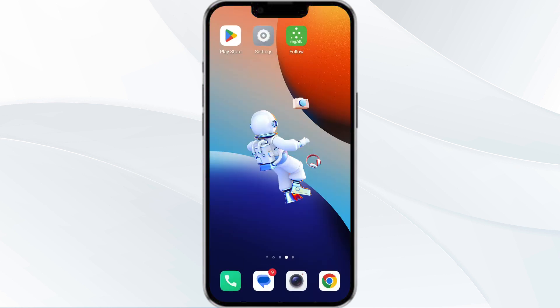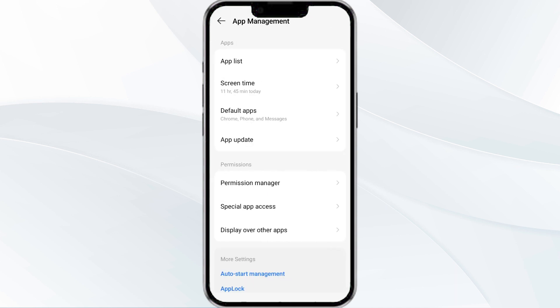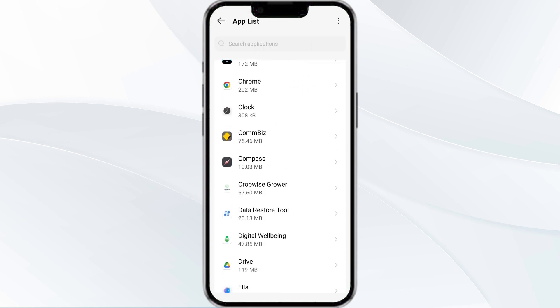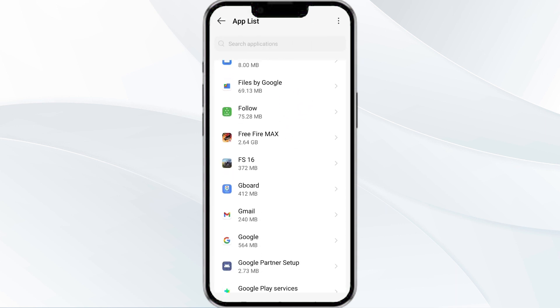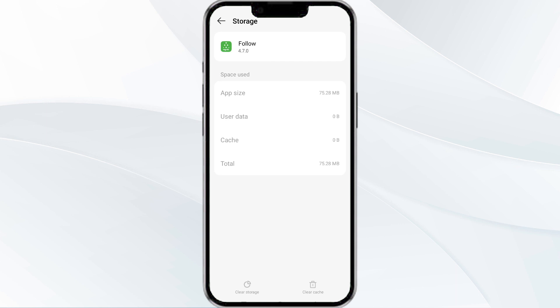The fourth method to solve this problem is to clear the Dexcom Follow app cache. To clear the cache, open your phone settings and navigate again to the App Manager. Select the Dexcom Follow app from the app list, then find the option for Storage and Cache, and tap on Clear Cache to remove unnecessary data.